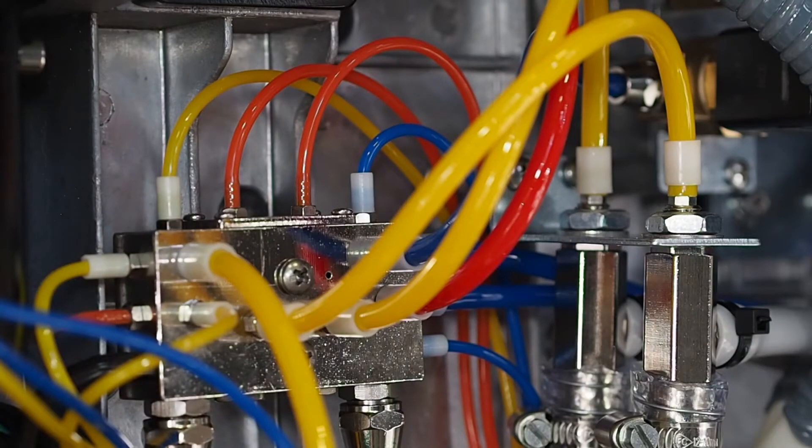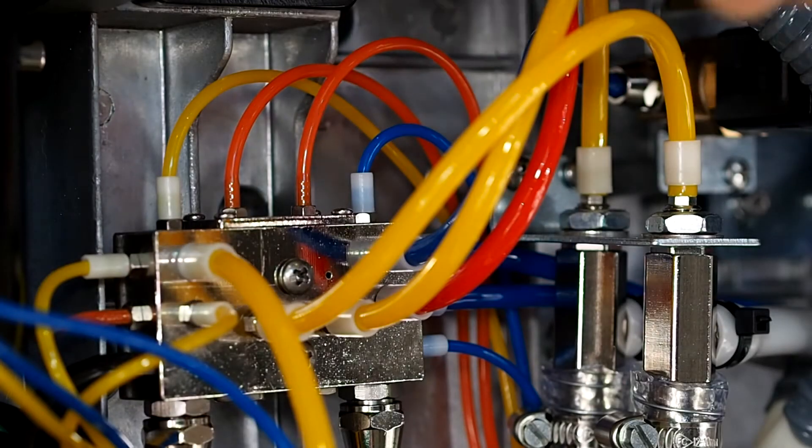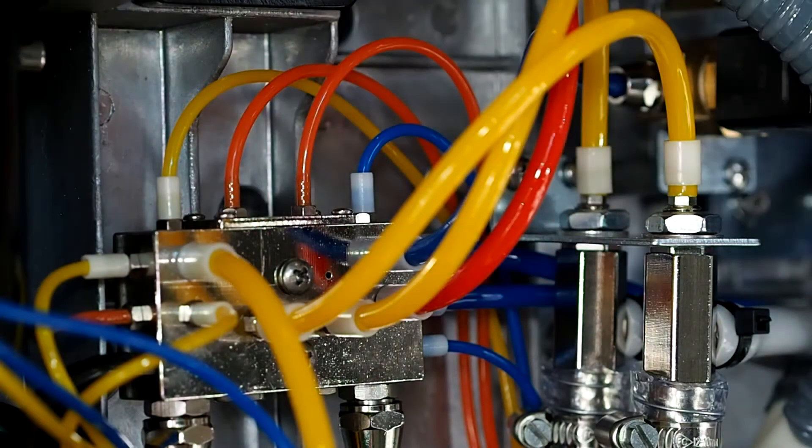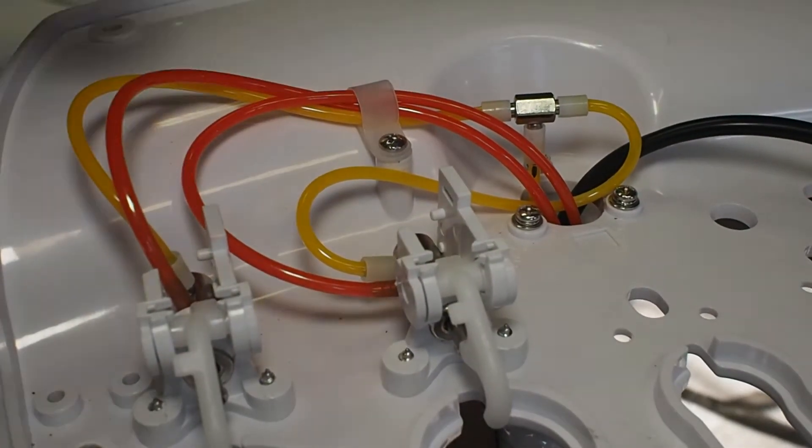Start checking from the beginning of the old system, from this tube that brings air to the switches in the tray. Check if the air arrives here.